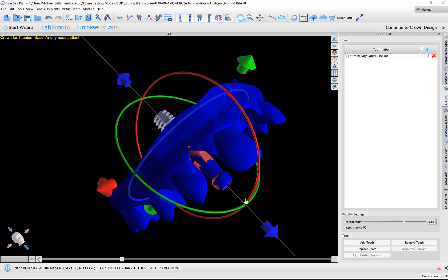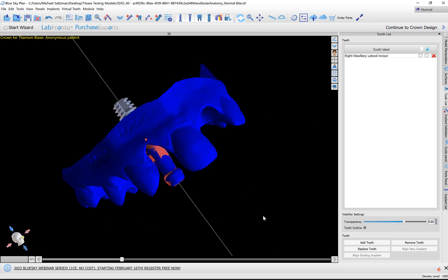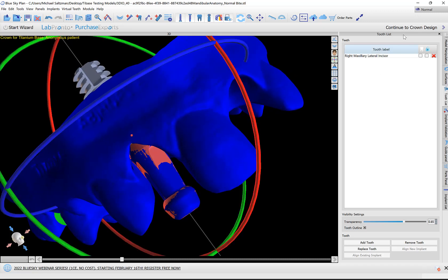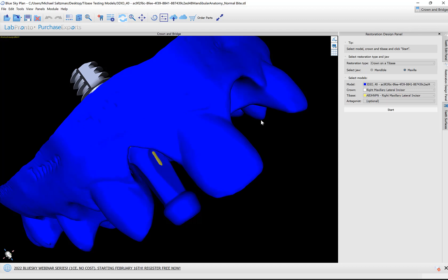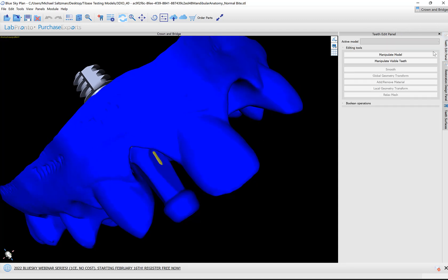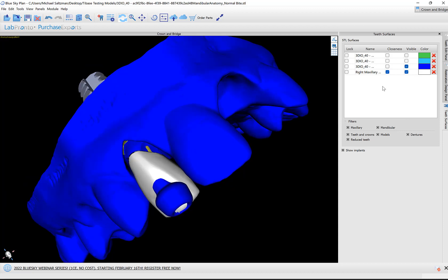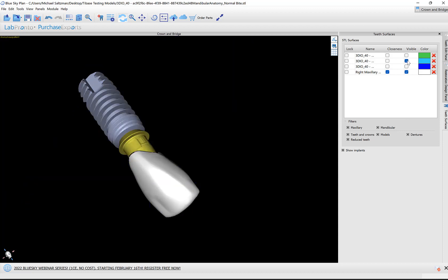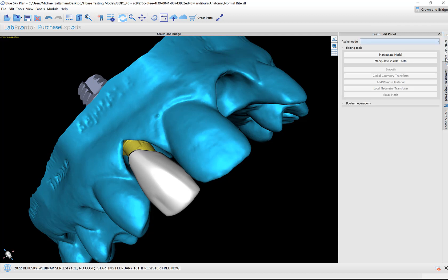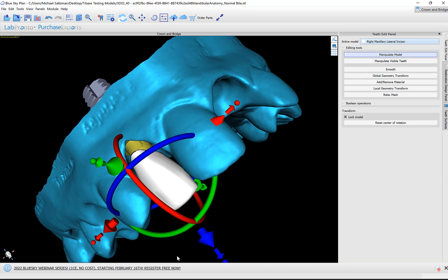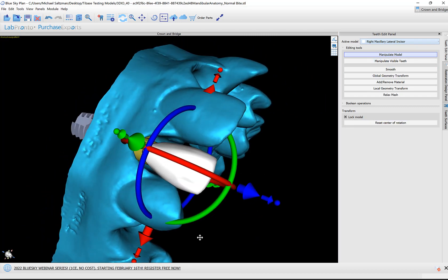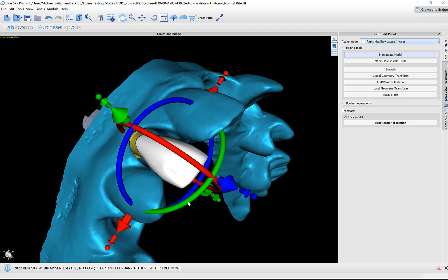At this point, I'm going to continue to crown design. You are able to modify the tooth and the shape at this point, but I think it's better doing it in the crown module. We have more capabilities and functionality for this purpose over there. Let's make the tooth visible. Now we go to the teeth edit panel.